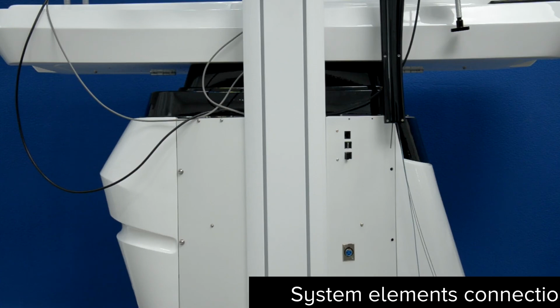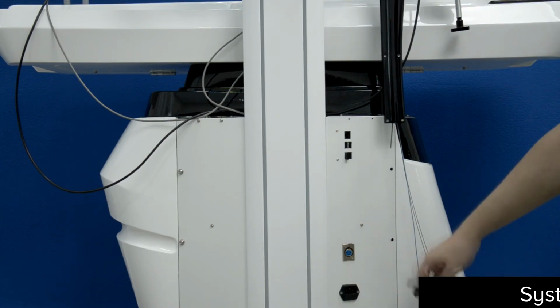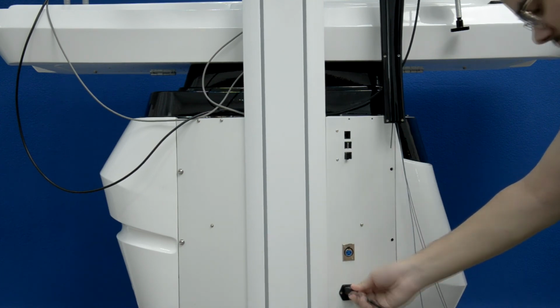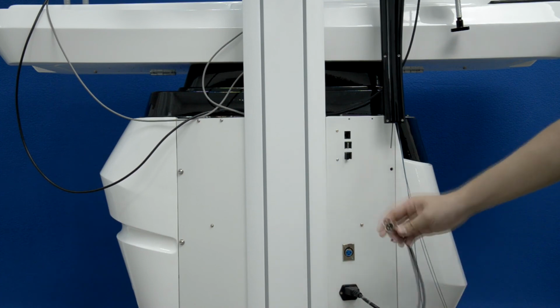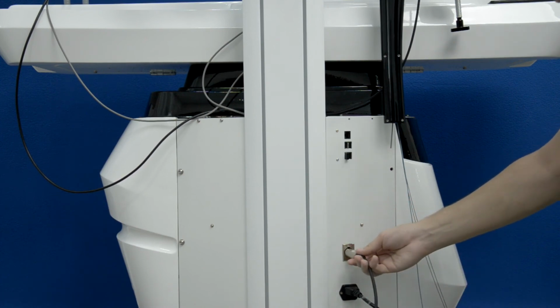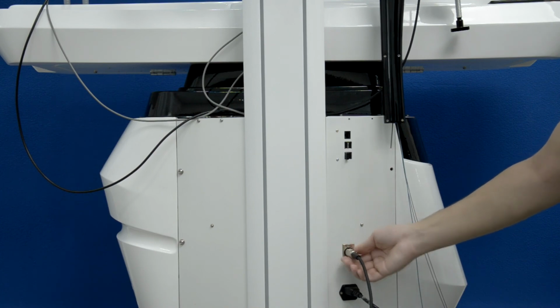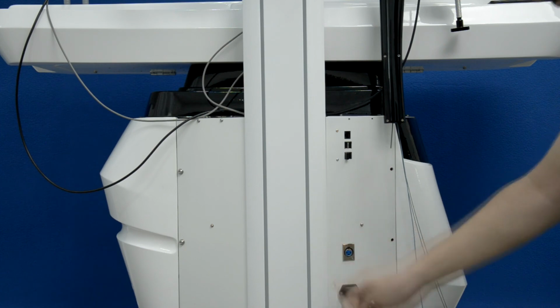When you get your new and shiny simulator, all you have to do is connect two cables. One of them is the power cable, absolutely standard. Connected here, it only goes in one way. Same for your pedals, it only goes in one way. Connect it here until you hear a click. To remove it, grab it by the metal part, press the lever here, and pull out gently.